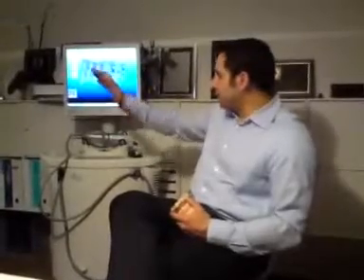But you have your own design software for the system also, besides we really don't sell anything. No. It's enabled in the system, but it's not really something that's critical. The only thing that happens with the laboratory application is the refinement of the margin. For example, some doctors have very unique prep techniques. For example, bevel, where 9 out of 10 technicians would look at it and say, that's where the margin is. But a special doctor that you've been working with, the way he preps his teeth, he wants it on the lower one that doesn't really look like the margin.